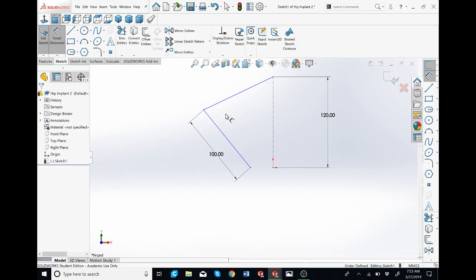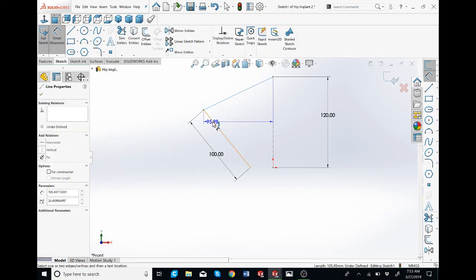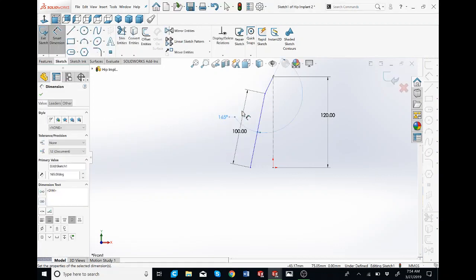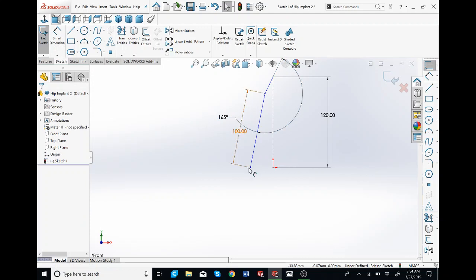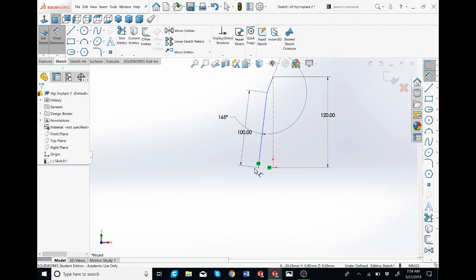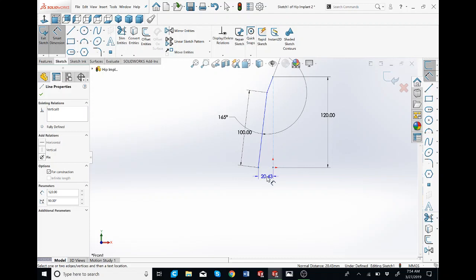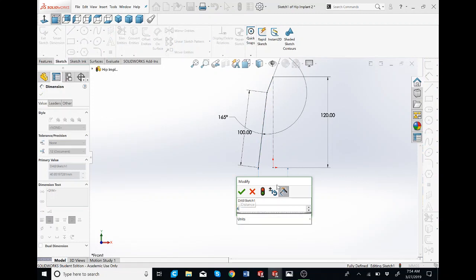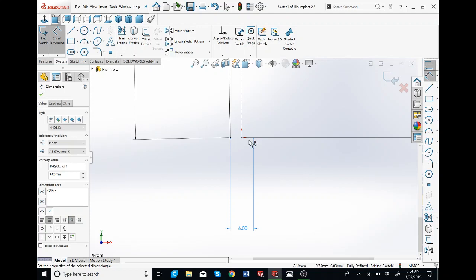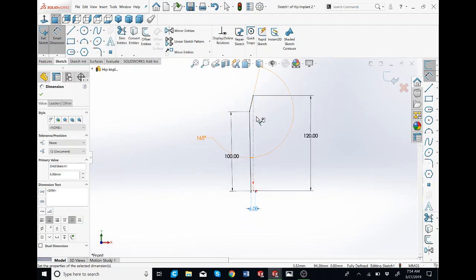So we're going to dimension the angle to 165 degrees. Click on the two lines with the Smart Dimension tool and put 165. It's going to look a little bit weird because you can still move it. So we're going to do another Smart Dimension and click on this point — make sure you click on the point and the center line. This is basically the radius of it. In the picture, this is actually an arc, so this is the radius. I'm going to hit 6 and enter. You can see the lines turn black — that means it's fully defined.